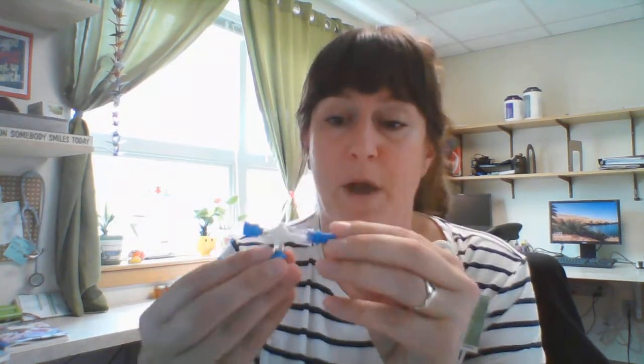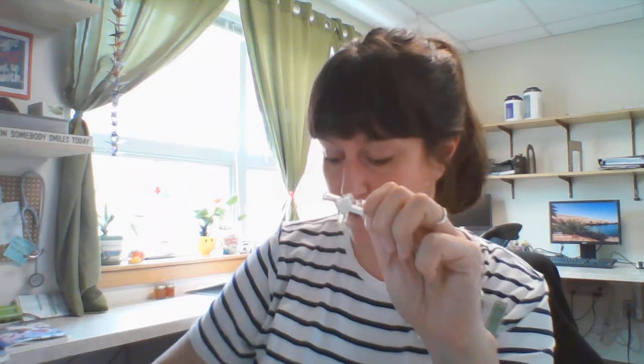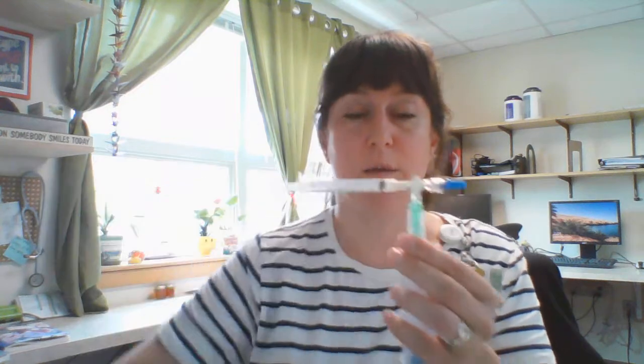We want to give 1.7 mL using our 3 mL syringe and the stopcock. The stopcock comes preset off to one port. We don't connect this to the IV — we're only using it as a mechanism to draw up medications. Remove the caps and attach the code syringe to one port and the 3 mL syringe to the other. It doesn't matter which goes where. Make sure the stopcock is turned off to the port you're not using.